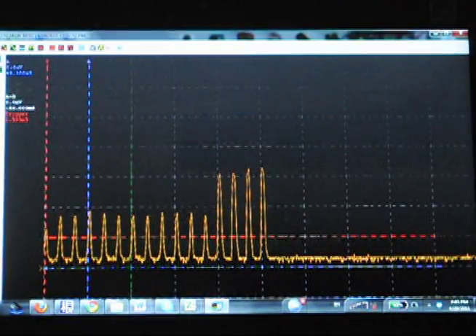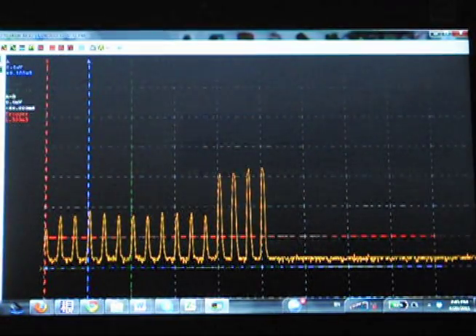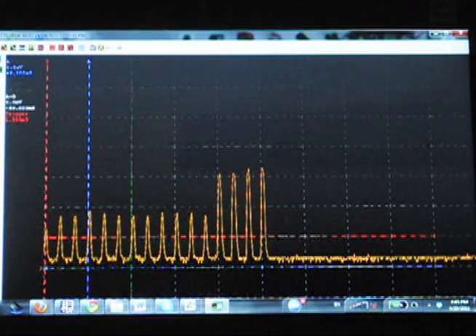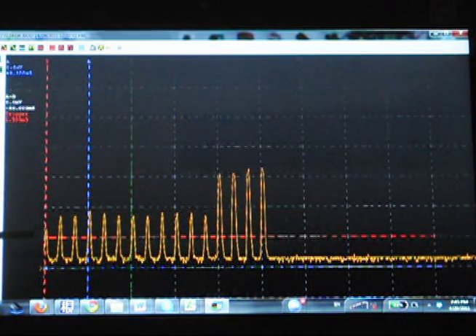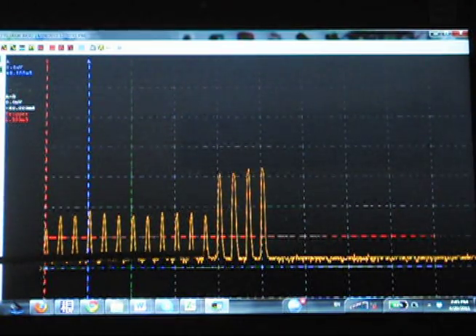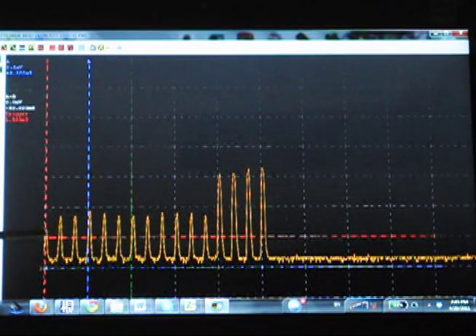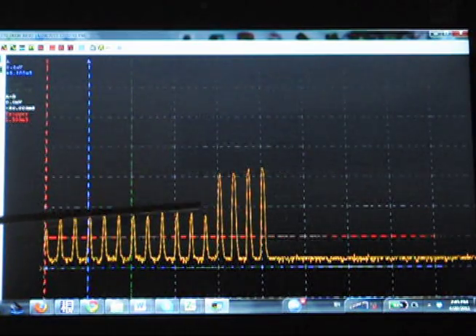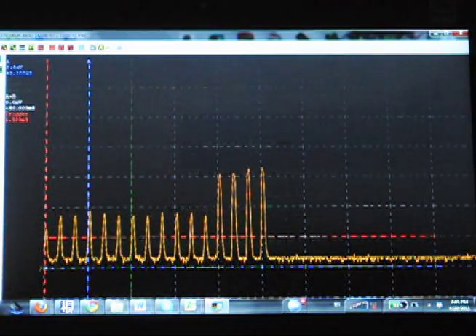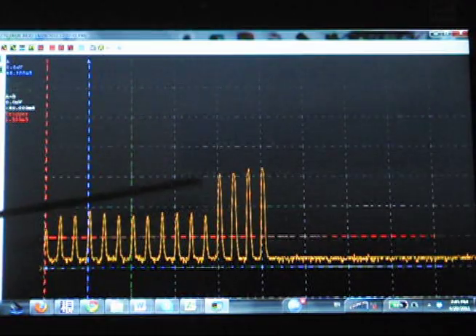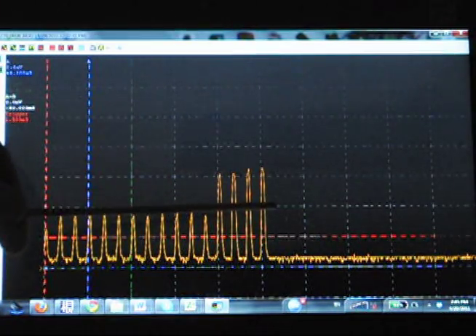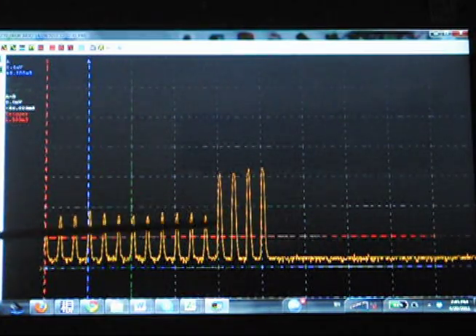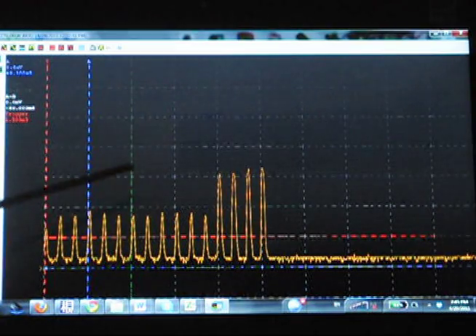All right, we just took an exposure at 0.06 seconds, and this is the x-ray display on an oscilloscope. You can see that there's a long preheat time. In fact that preheat is generating some x-ray, and then here is your actual x-ray exposure, and you can see that's much higher.